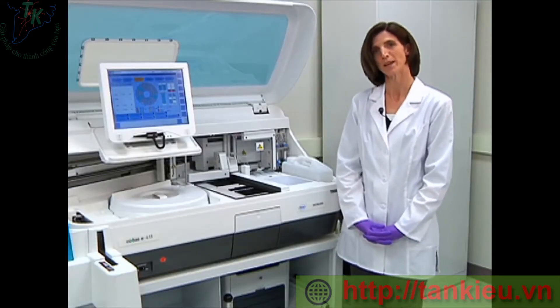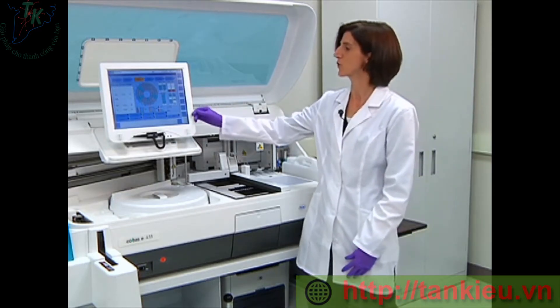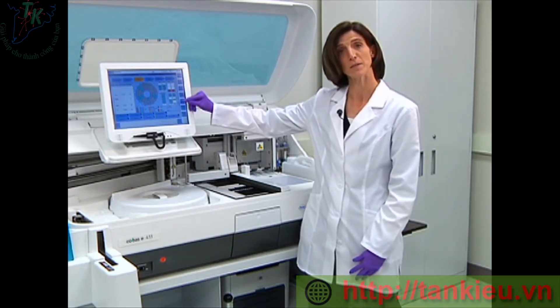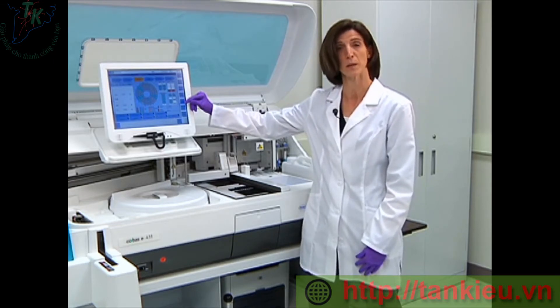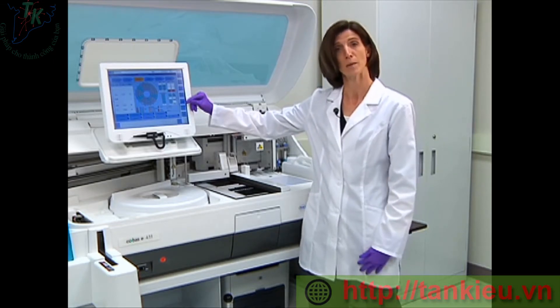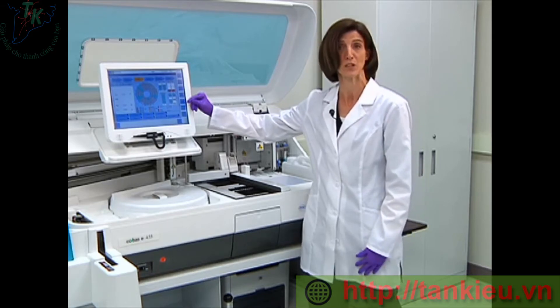So now let's look at our solid waste. On the system overview screen, it is counting the number of cups and tips that go into the solid waste container. The container can hold up to 1,100 cups and tips, so depending on your lab's volume determines how frequently you need to change it.